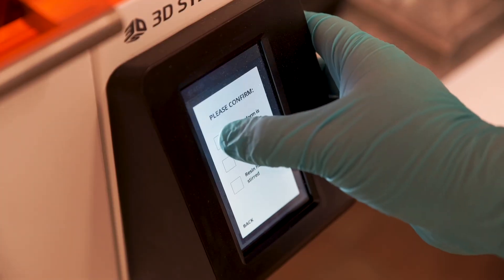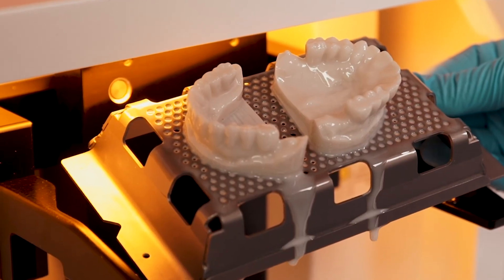It used to be the more accurate the mill the better it's going to fit in the mouth. Now it's not was the mill accurate, it's the printer is accurate. For me to design something I need to make sure that's exactly what goes in the mouth, and with the Nexdent it's every time.